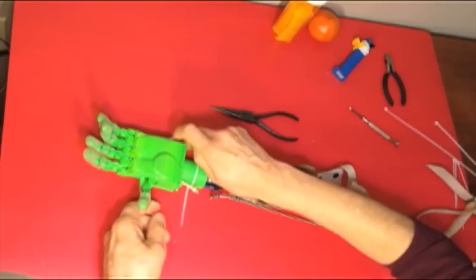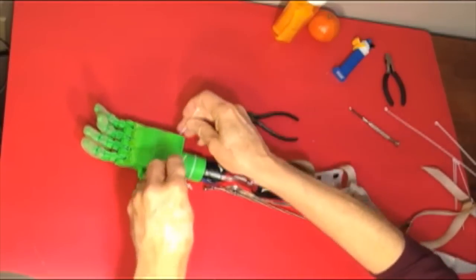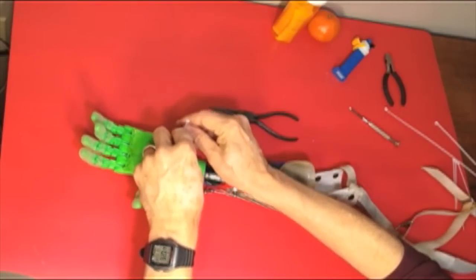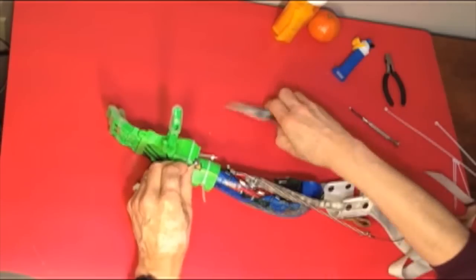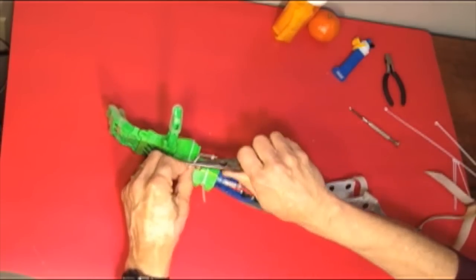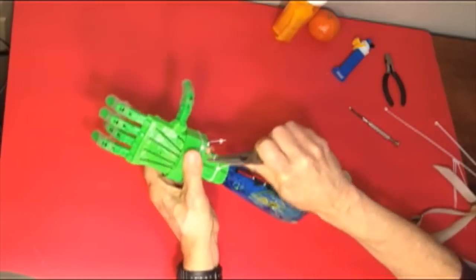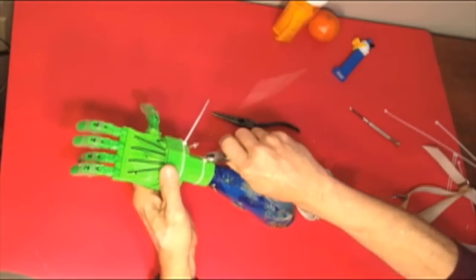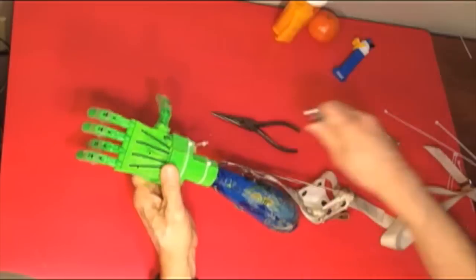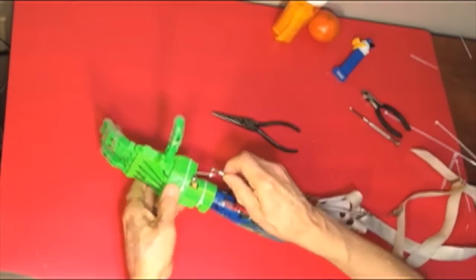Wilhay saw a video of kids using the cool 3D printed hands by Enable and he wanted a hand. We designed this adapter for the Enable Raptor hand to fit Wilhay's existing prosthesis in a way that it can be taken apart and reassembled by his parents.